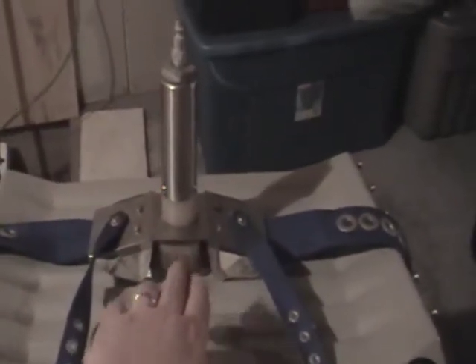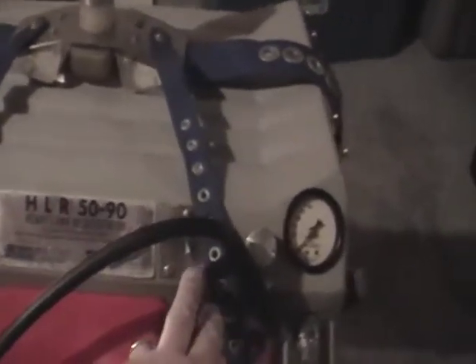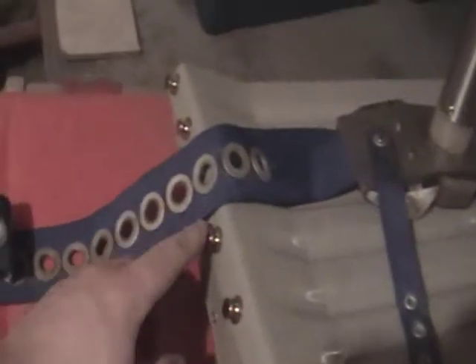The cylinder would go on the sternum of the patient right here with the plunger. These two straps on each side would go over the patient's shoulder and attach snugly on each side. These two straps on the side would hook onto one of these clips and be held snugly against the patient.